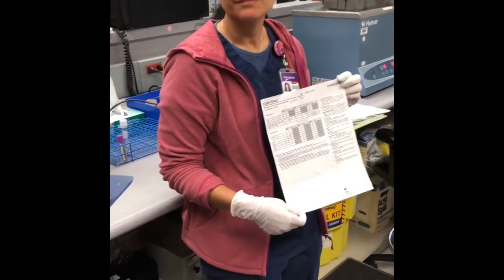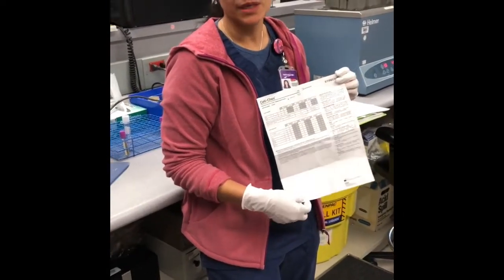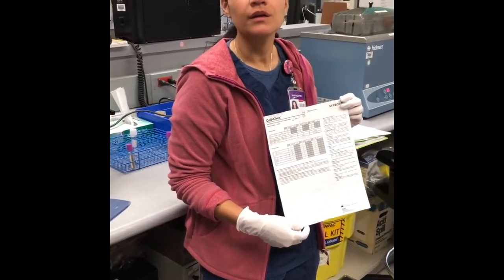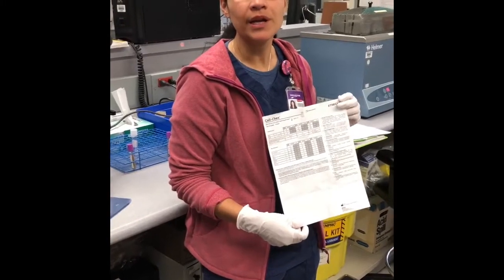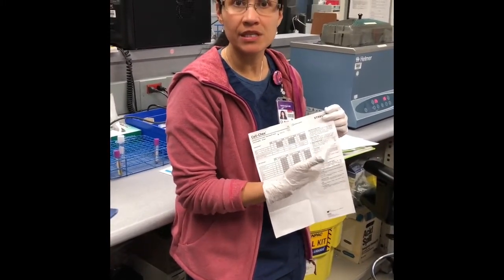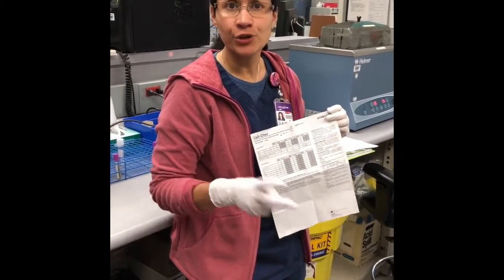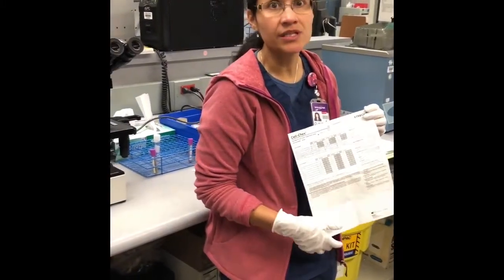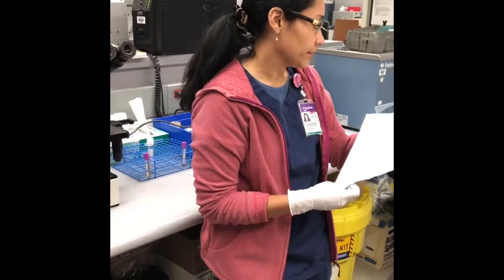Just the same way we do on the iris, we do a background check. With the wet mount, you just look at it, make sure it's clear, nothing's in it. And then we calculate it, of course, and it has to be between the ranges, so we can prove that the dilution was accurate, in between the ranges. Okay, so that's the procedure.